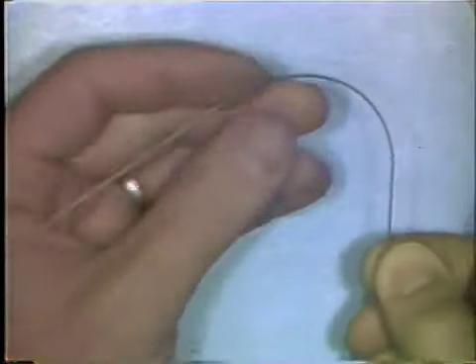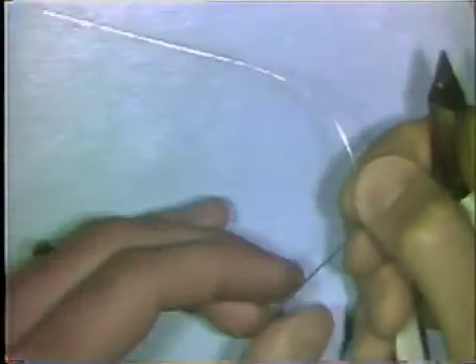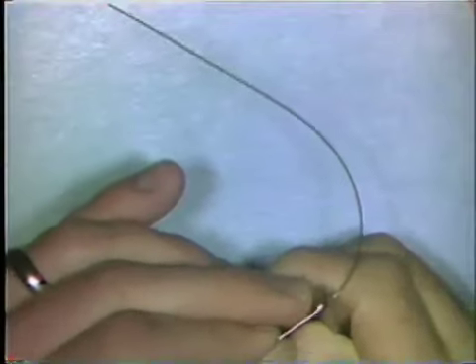After you've done this, you can adjust the curve using the method of flattening the wire with the base portion of the plier or adding small bends as needed to adapt it to the labial surfaces of teeth or to the pattern that you want to adapt the curve to.